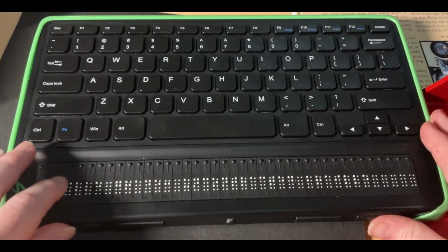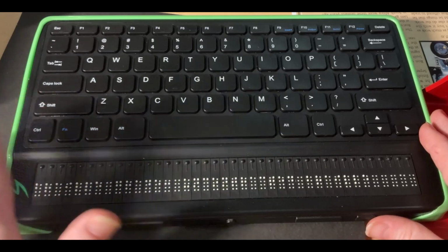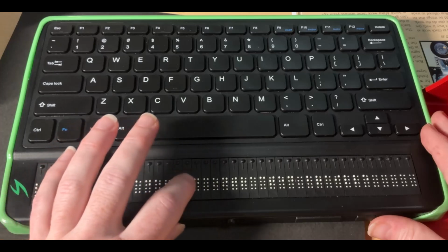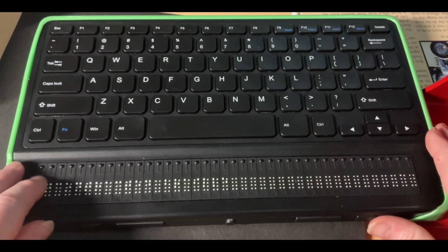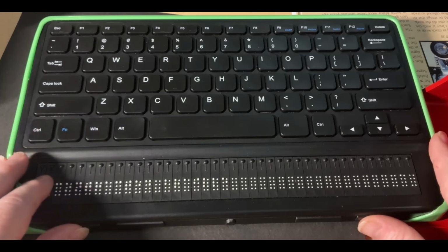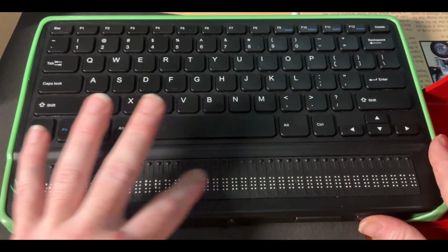Now, the first thing it's going to ask me is what Braille grade do I want to be the default Braille grade for this profile? I want it to be contracted, but right now the Braille display says it is uncontracted. In order to change it, I'm going to press enter or cursor routing key, and then use my next and previous thumb keys to make a choice. My options are, right now uncontracted is in focus. If I hit my next thumb key, I'll see contracted Braille is an option.